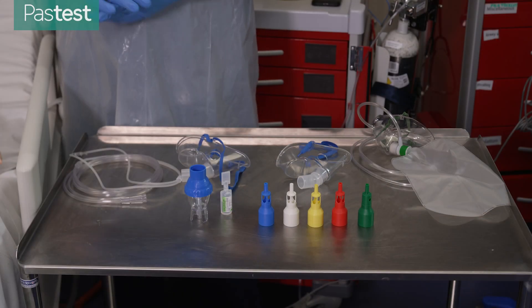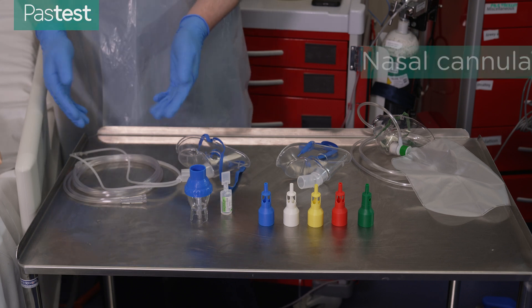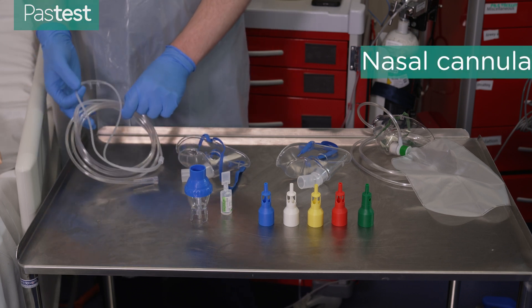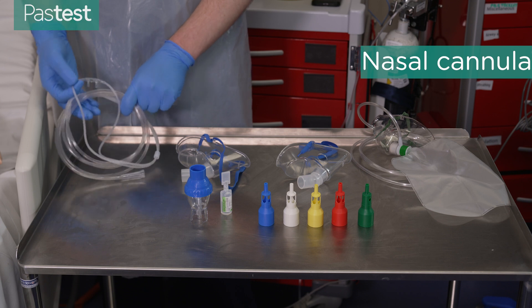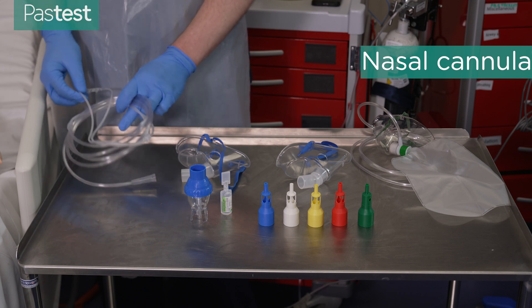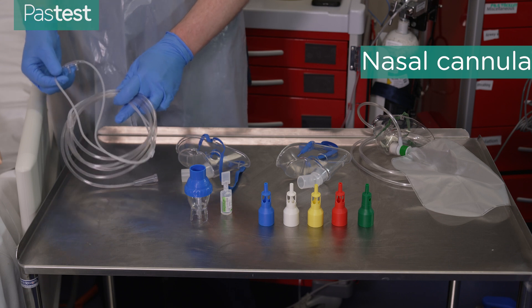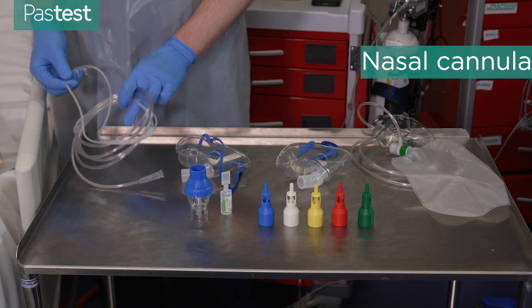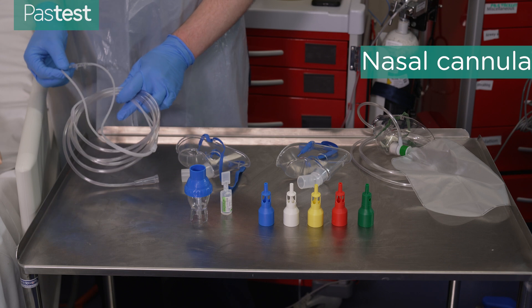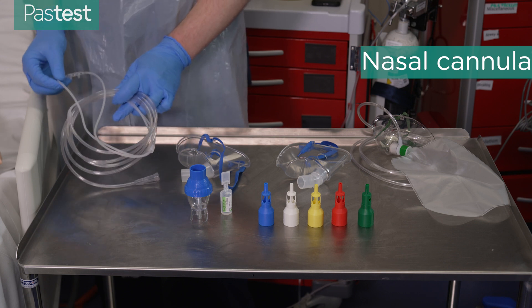Now we're going to look at some oxygen delivery devices, starting with a nasal cannula. Nasal cannulas are usually used for mildly hypoxic patients who are not very acutely unwell, and these can deliver around 24 to 30 percent oxygen concentration from 2 to 4 litres flow rate.